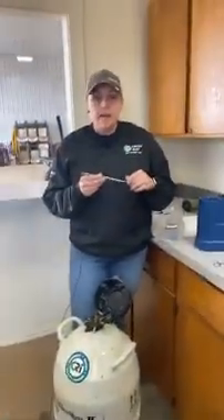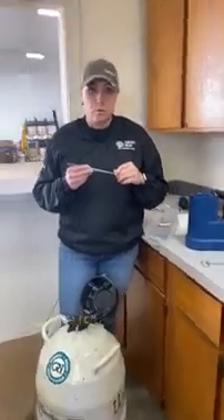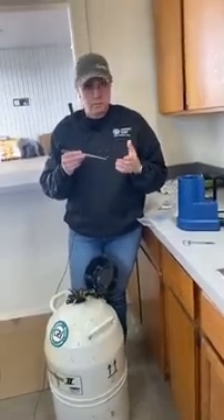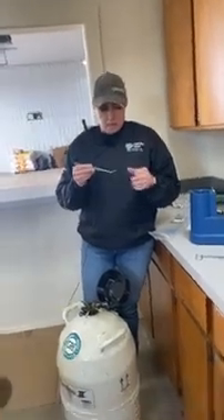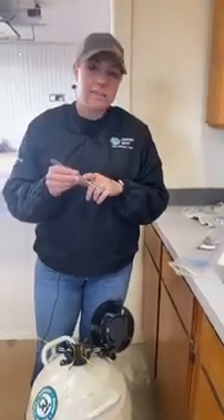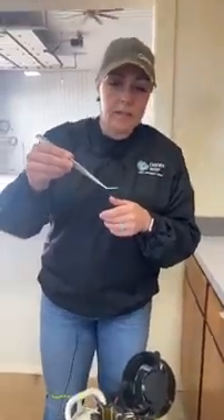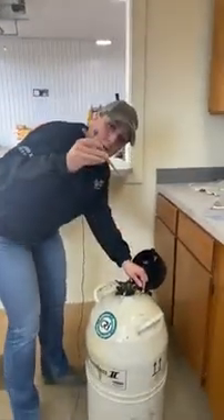The other question I got was about using tweezers to pull the semen from the tank. Tweezers are something you should be using whether it is for halves or for quarters, but it is really even more important with quarters — they're smaller diameter so they're a little harder to pull out with your fingers. Some kits come with plastic tweezers, but I think those are really hard to use. I like this pair — Gen X sells them — it's stainless steel with a little groove right in there made just for semen straws, and it works really slick.